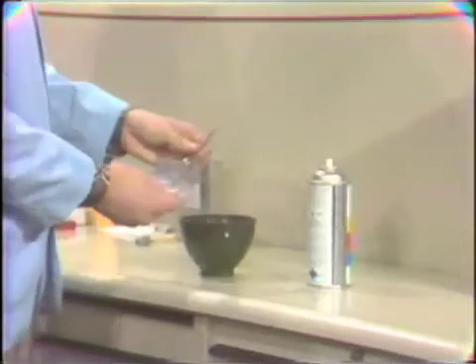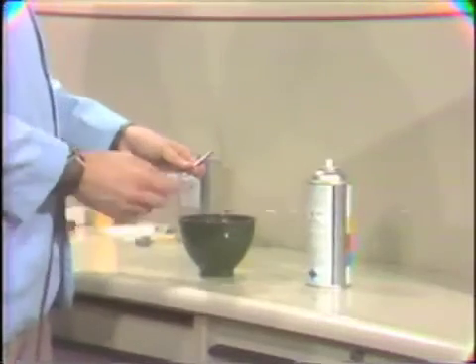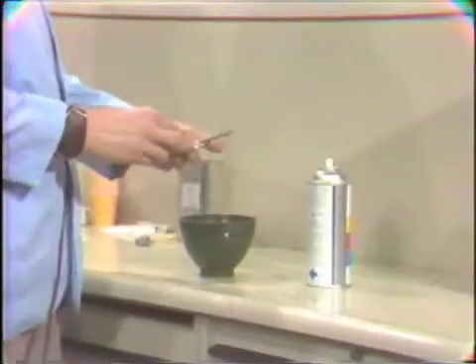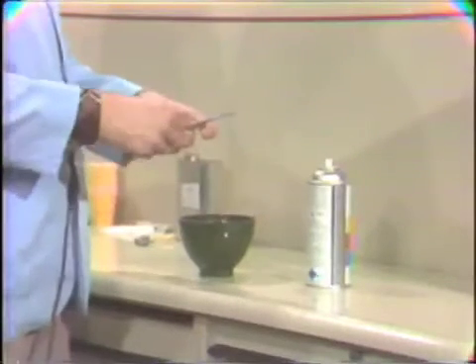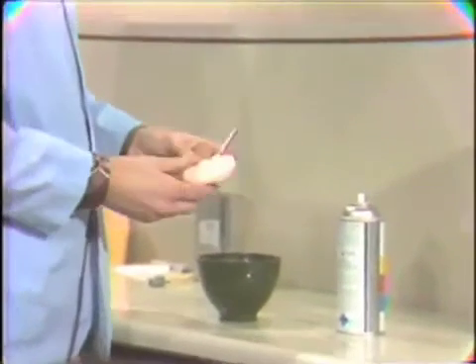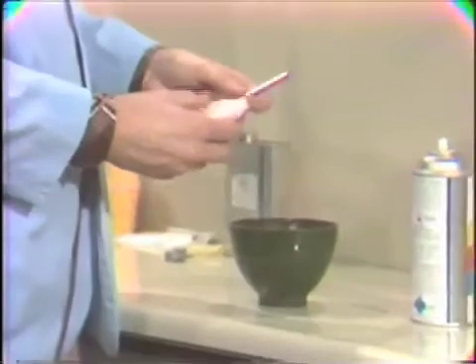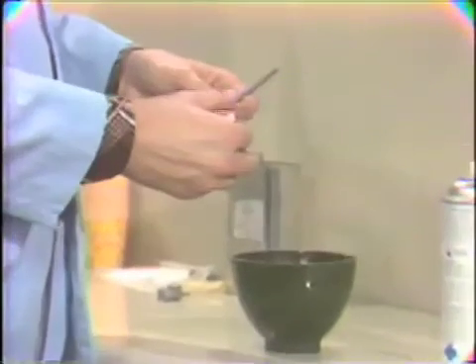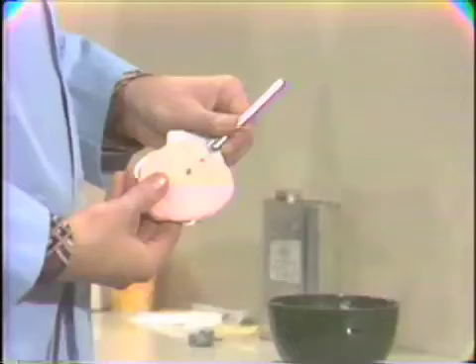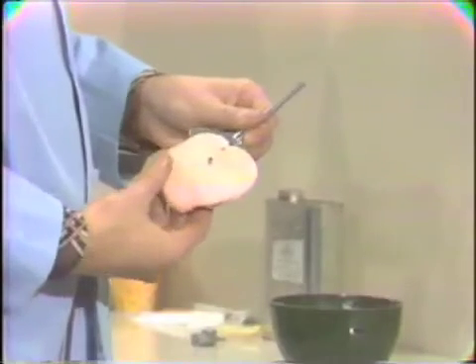Then we'll go ahead and load our maxillary portion first. Now in loading this half, it's important that we get enough acrylic to completely cover the biting area and completely contain the cutter studs. But it's also important that we don't cover up the central bearing stud. We need access to that later.